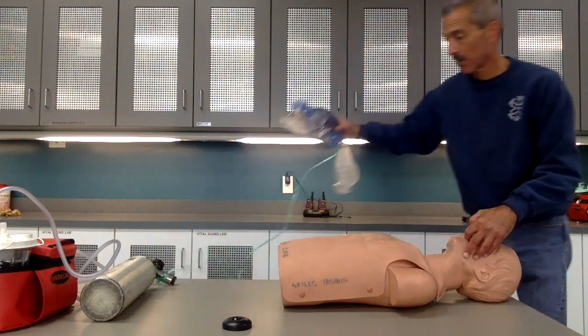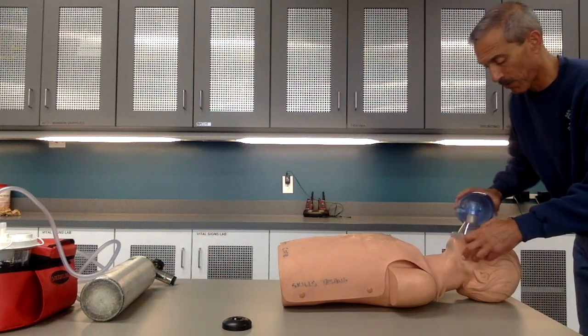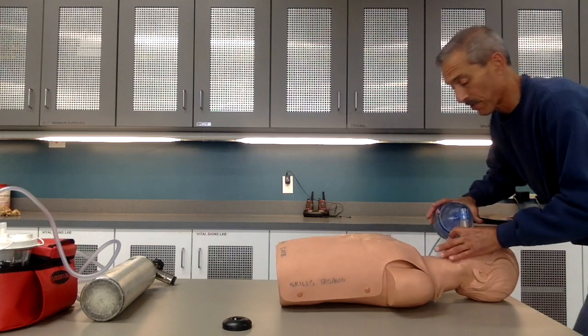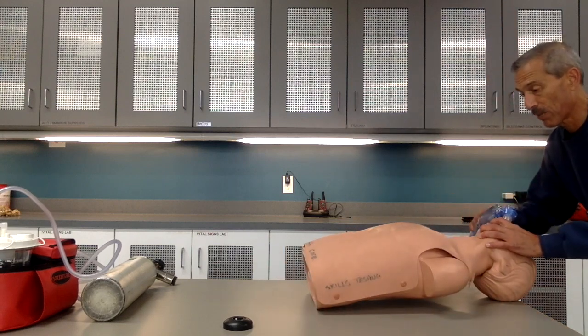Take my BVM. Make sure that the mask covers the nose and mouth properly. Get a good CE grip. Head tilt, chin lift.